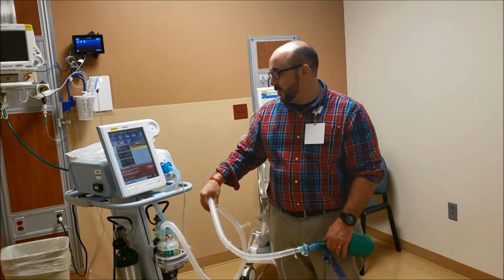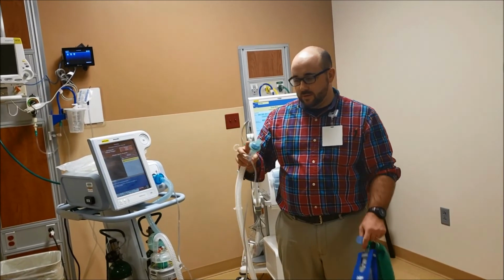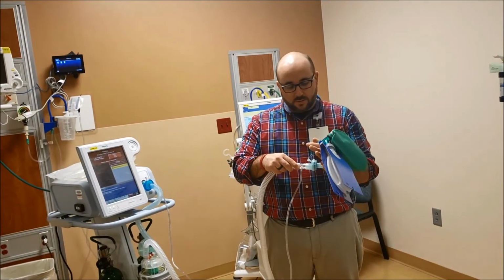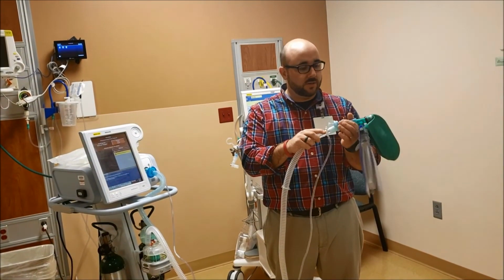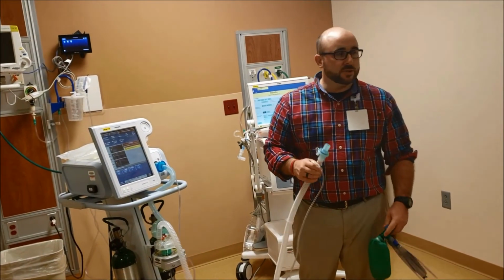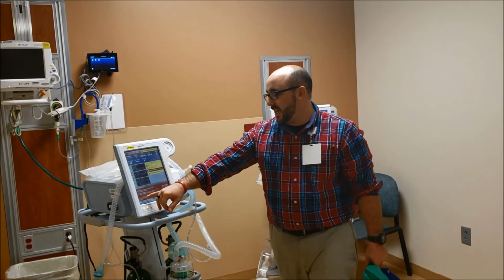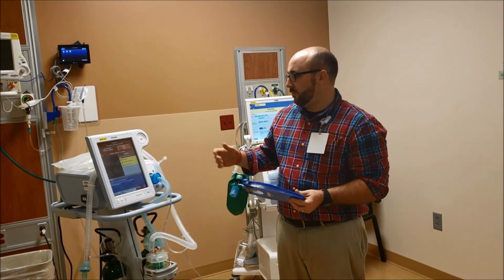And then anytime you get standby on this and you take them off, leave it open, it should just shut off like that, and it'll sit in this mode. Yep, it'll blow initially and then it'll stop. And then if you occlude it, or if it feels back pressure, like from a lung, it'll start on its own. It feels the patient push back against it. Right now, it gives you a countdown on that one. It says you have 60 seconds to extubate. And it'll sit in this mode right here until they need to go back on.